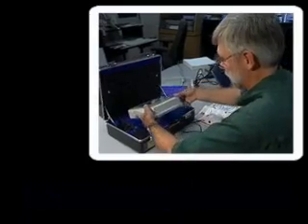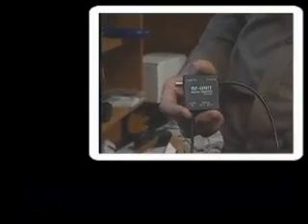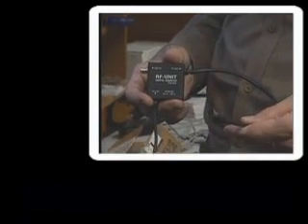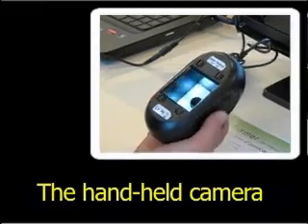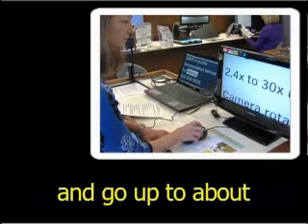The user places the camera in a sturdy carrying case. He also displays an RF unit auto switch, a 2x2 inch connector. The handheld camera to TV models start at around $100 and go up to about $1,000.